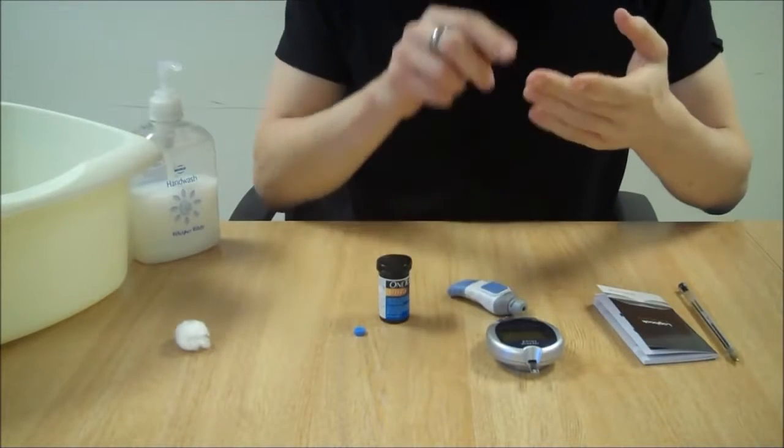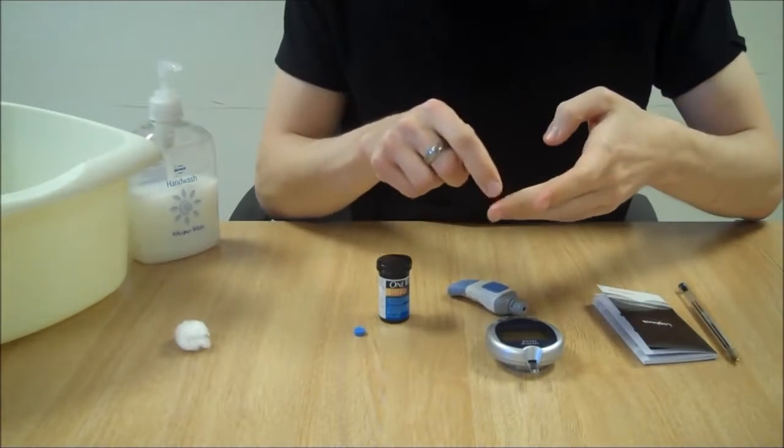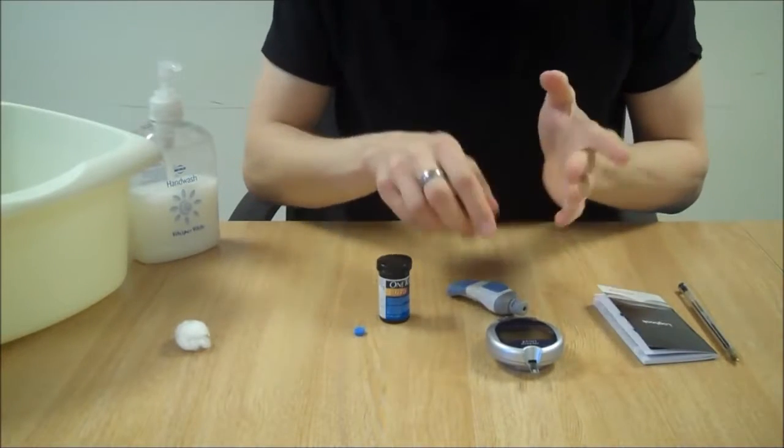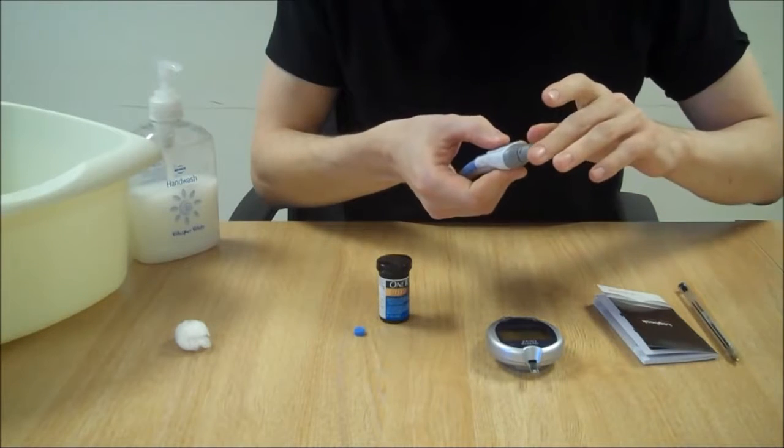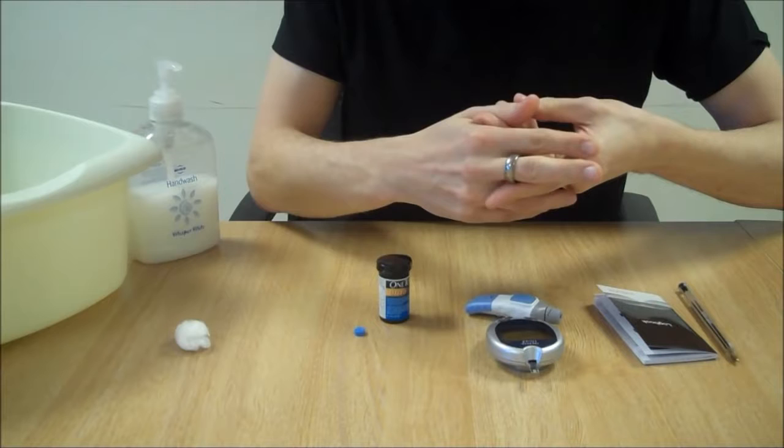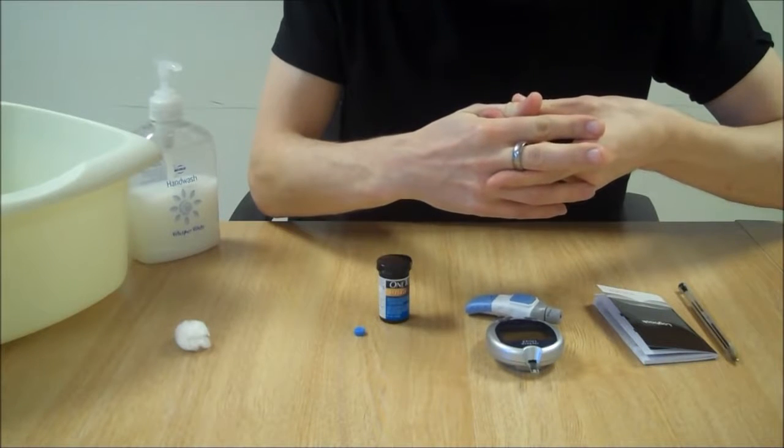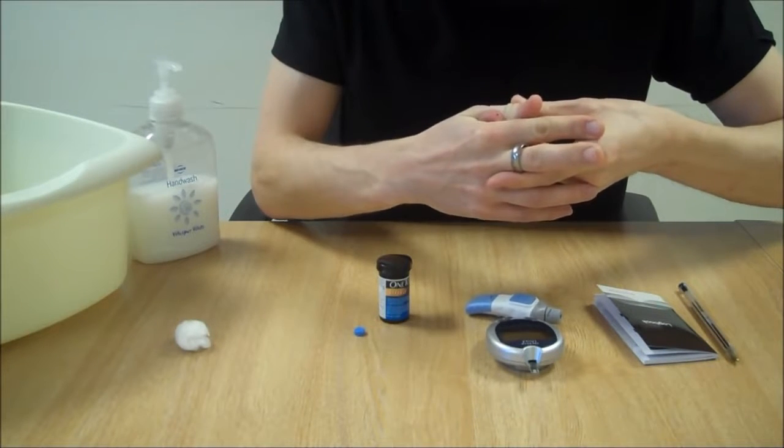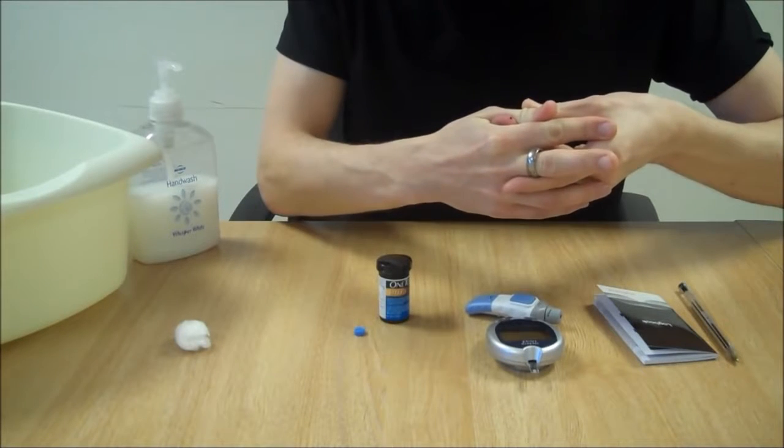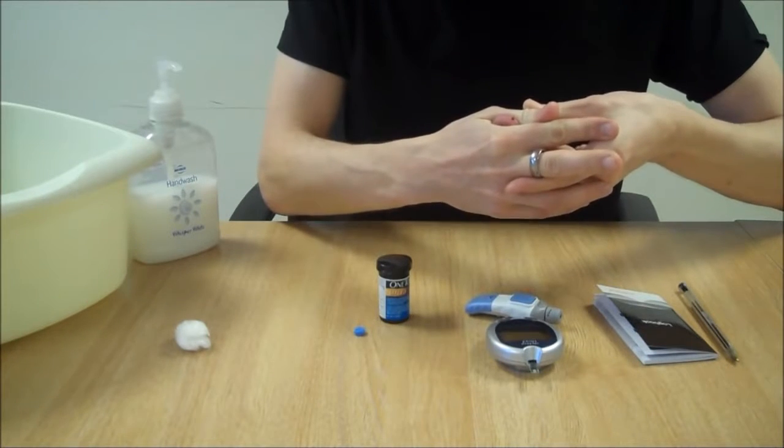Prick your finger at the sides as it's less painful than at the tip or at the pad. So prick it on the sides just here. Give a little squeeze. Not too hard. If you need to squeeze too hard, then take another test and prick your finger again.